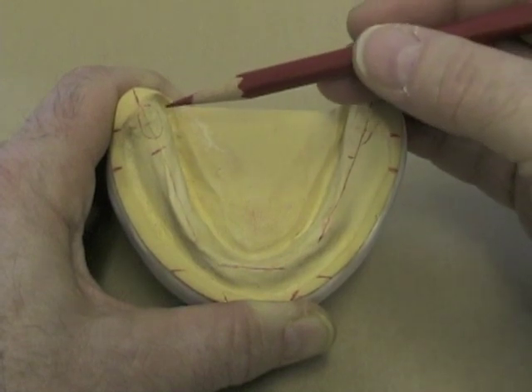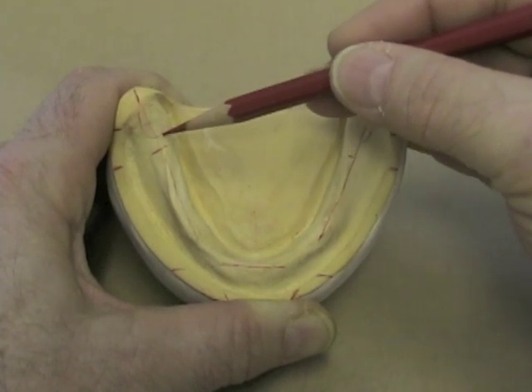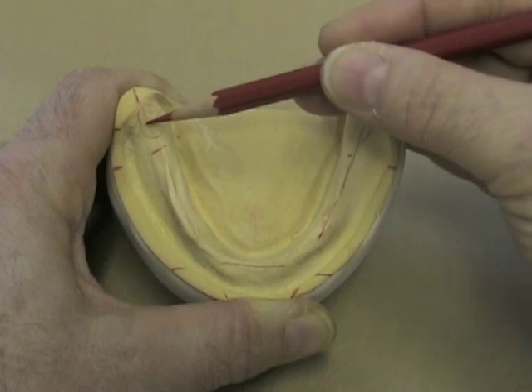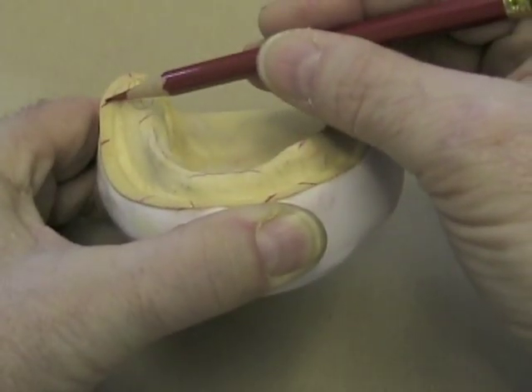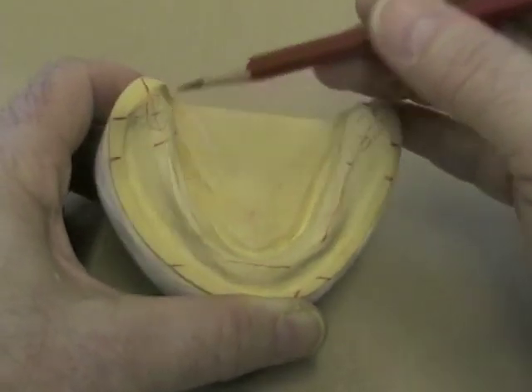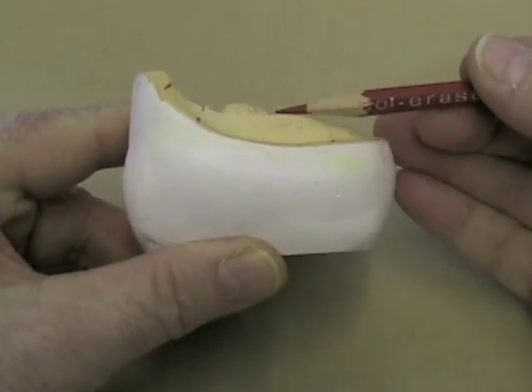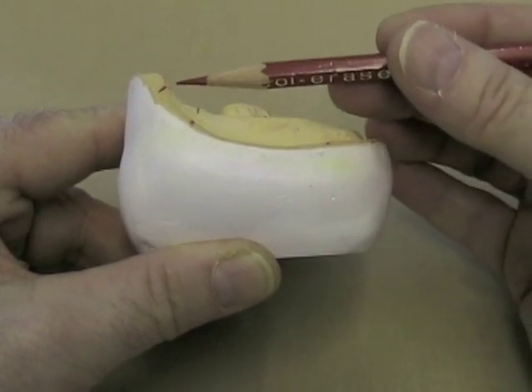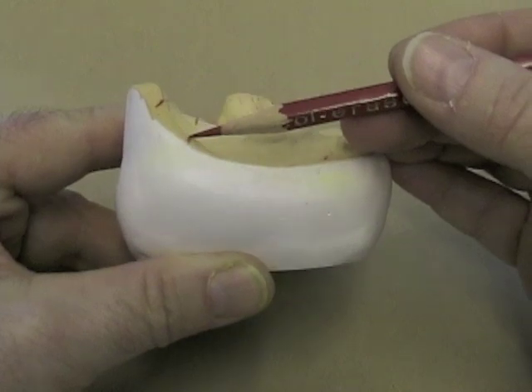Before you begin to set your denture teeth, you should make a couple of reference lines on your cast. Firstly, you should outline the retromolar pad, and put a point midway along it, bringing that line outwards onto your land area. You should also view the arch from the side, identify where the horizontal plane of the residual ridge begins to become more vertical, and put a line there on the ridge, bringing it out onto the land area as well.